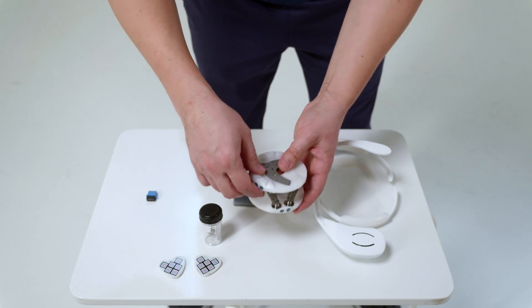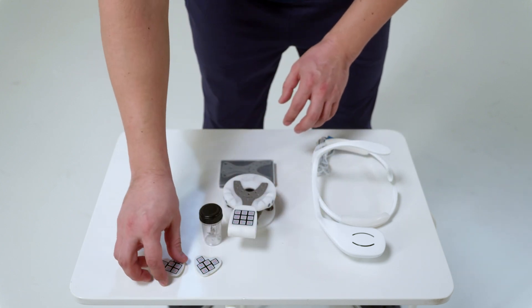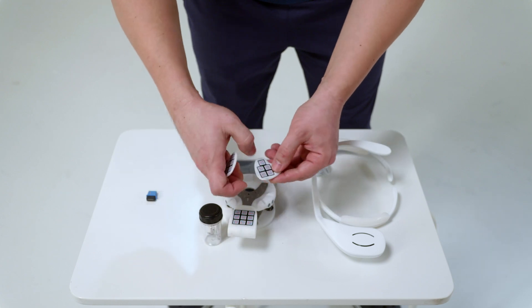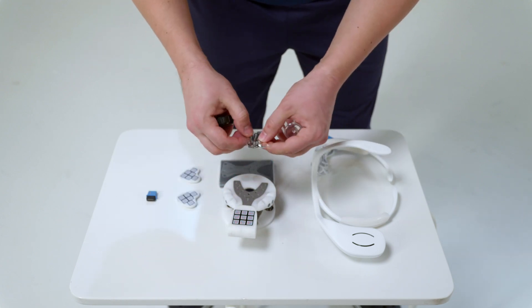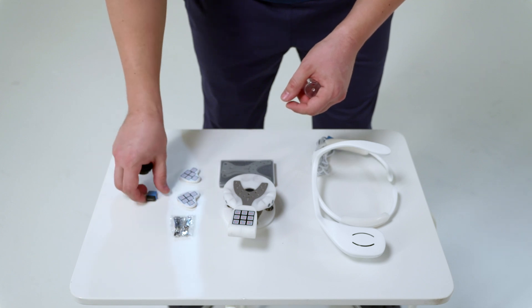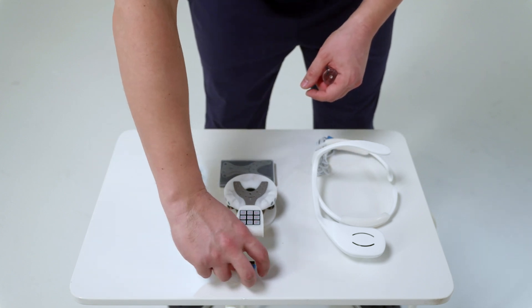In the future, a model of the upper jaw will be placed on the bite fork with silicone registrate. Side markers for axiography holders. And USB module for digital arc.